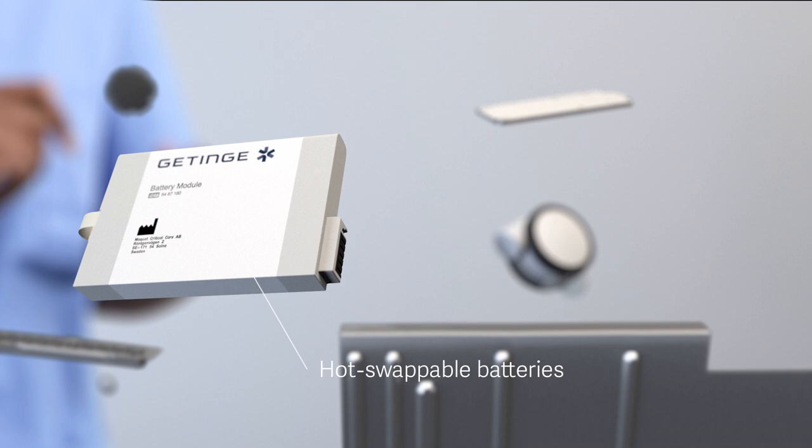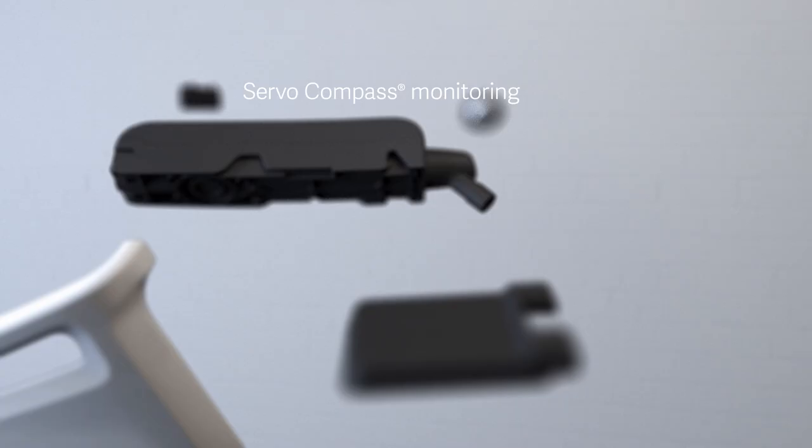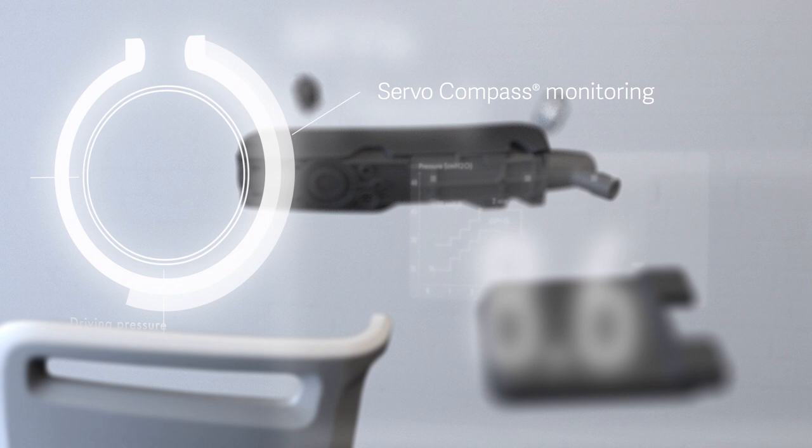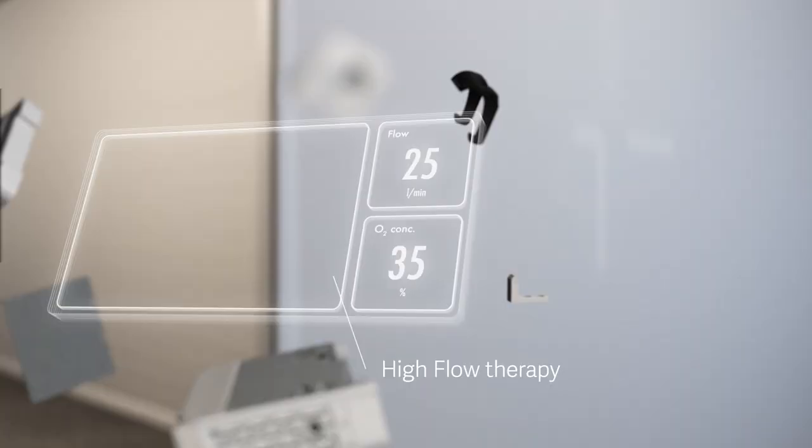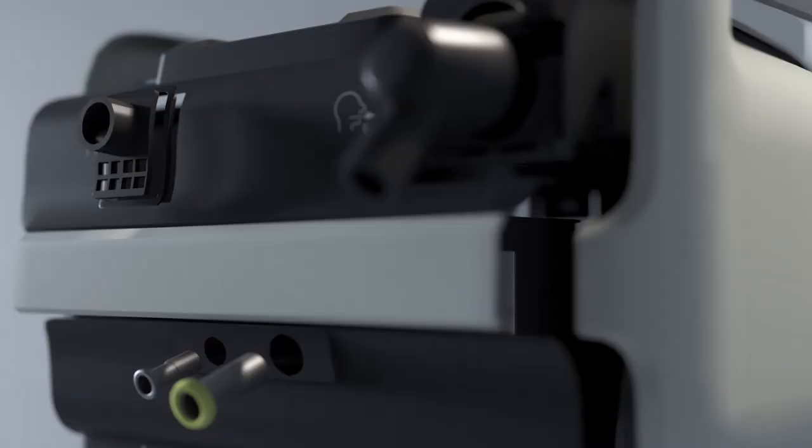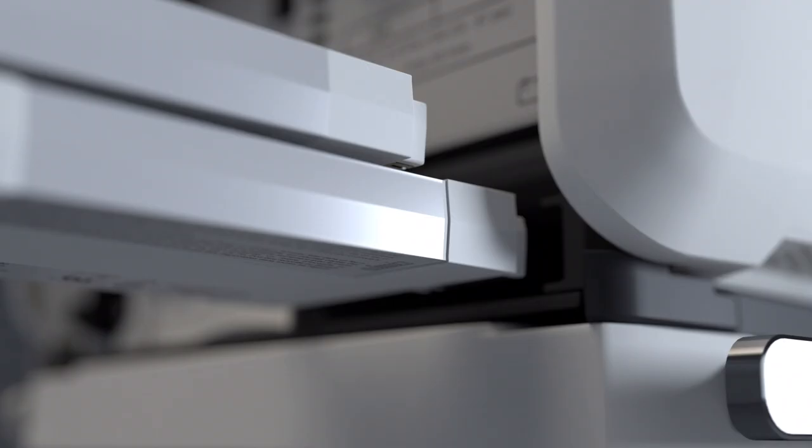Like contextual-based guidance with dynamic images, three hours of backup power, new monitoring and lung protective tools, integrated nebulization, CO2 monitoring, and high flow therapy if needed.